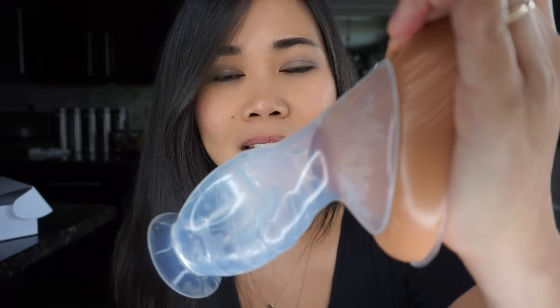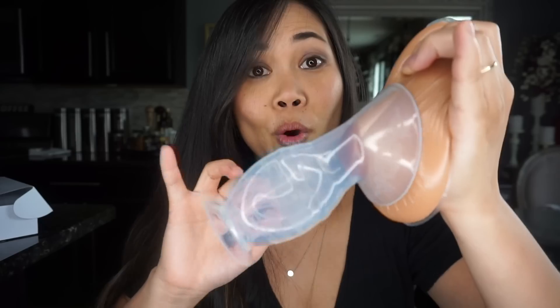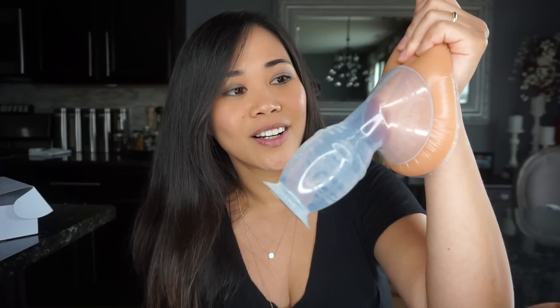See how much boob is in there? How much suction? It's not going anywhere. Unlike the traditional way of putting it on — I knock it over every single time, sometimes Blake would kick it and it gets knocked off — but look at that, look how tight that is. Oh, it came off.